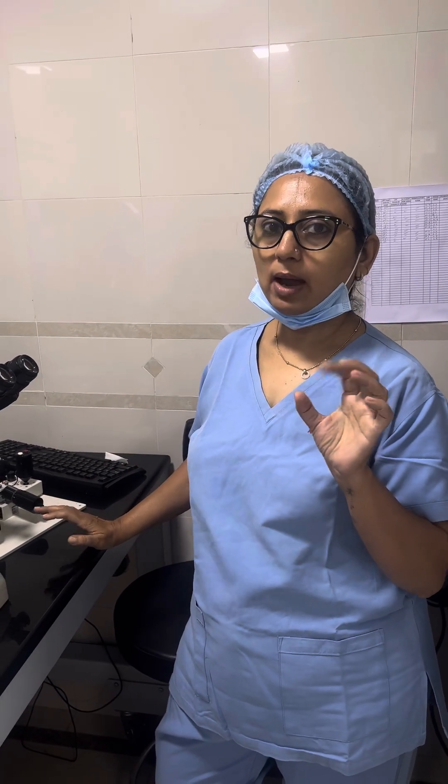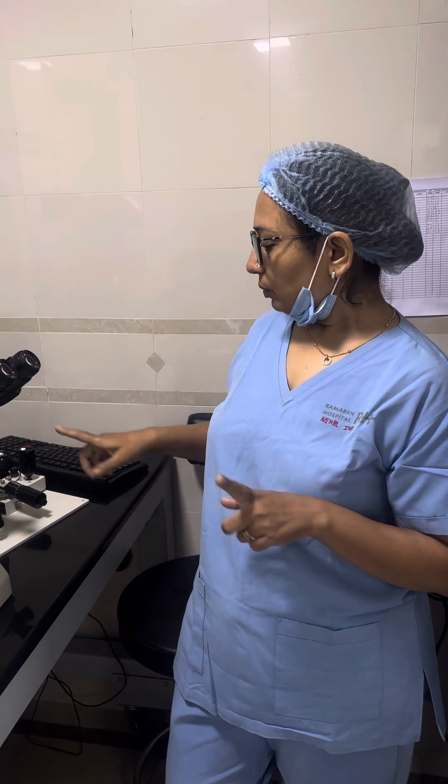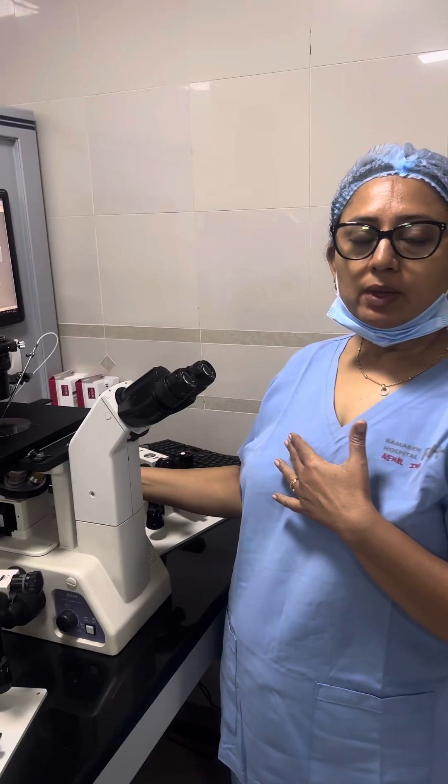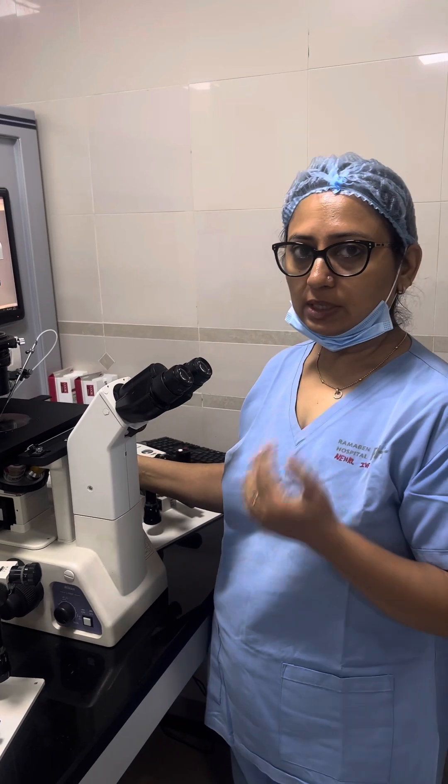Main points I will say in the end. Make all the fine adjustments neutral on 0 and 5. And then put both the injectors on between 20 and 30. And thirdly start with 4x, and then 10x, and then 20x.